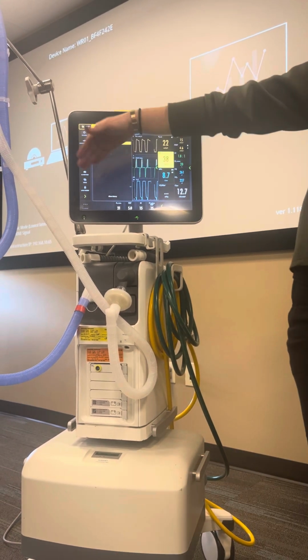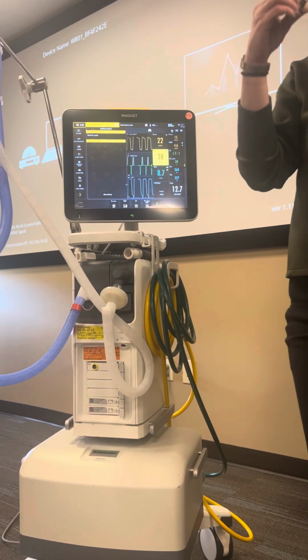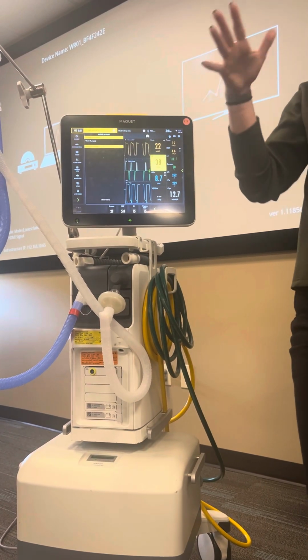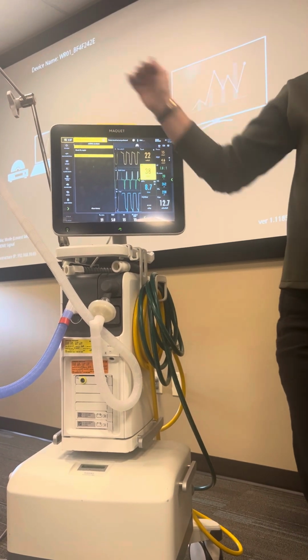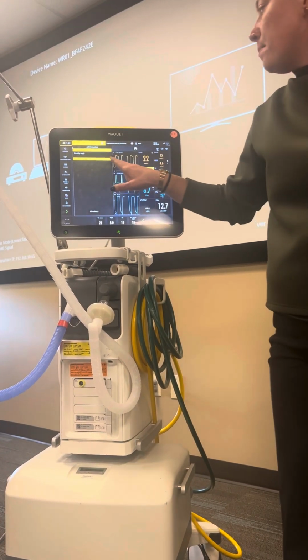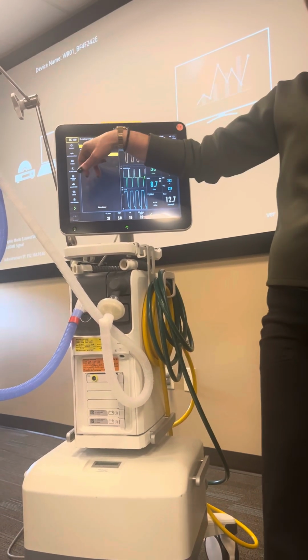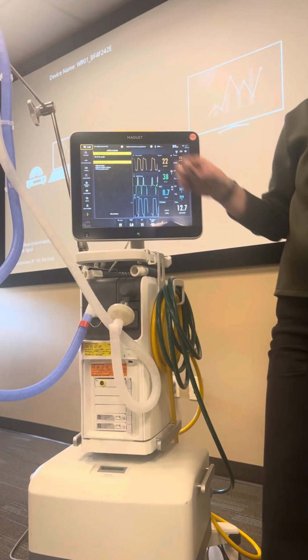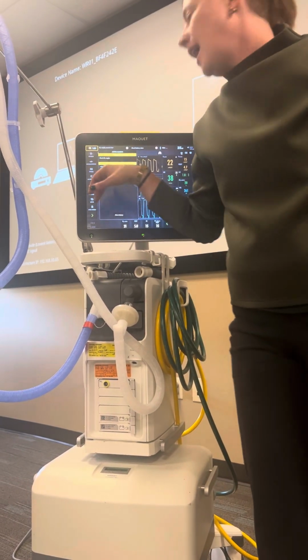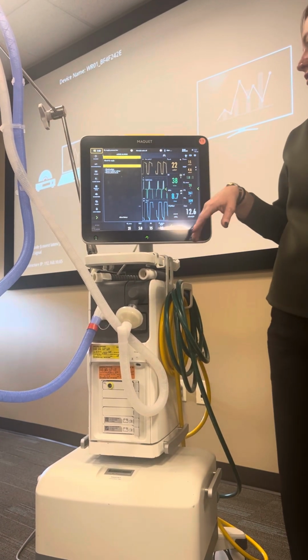So it really is going to bring it down to the most simple level so that no matter how intense you are, because an emergency is happening and this thing's screaming at you every which way, it's really, really easy and step by step. And you can expand it with those arrows. So even something like a high respiratory rate, it's telling you check your patient, then check your ventilator settings, and then check your patient circuit. Check for all of those things to troubleshoot why this respiratory rate is high.